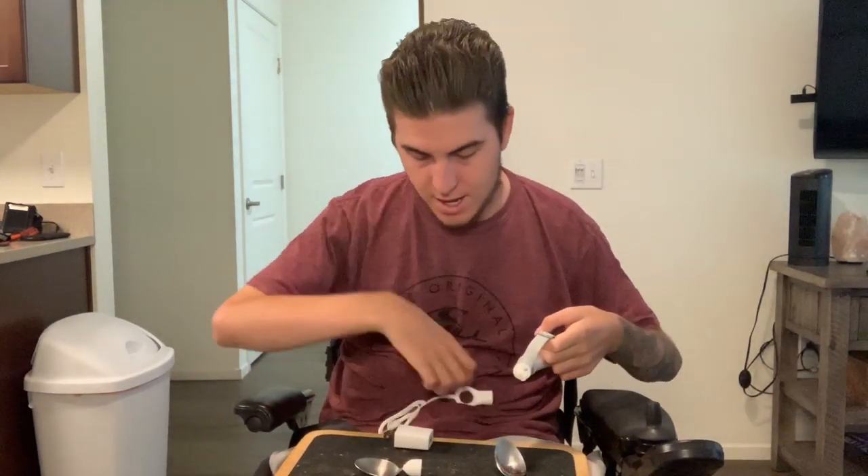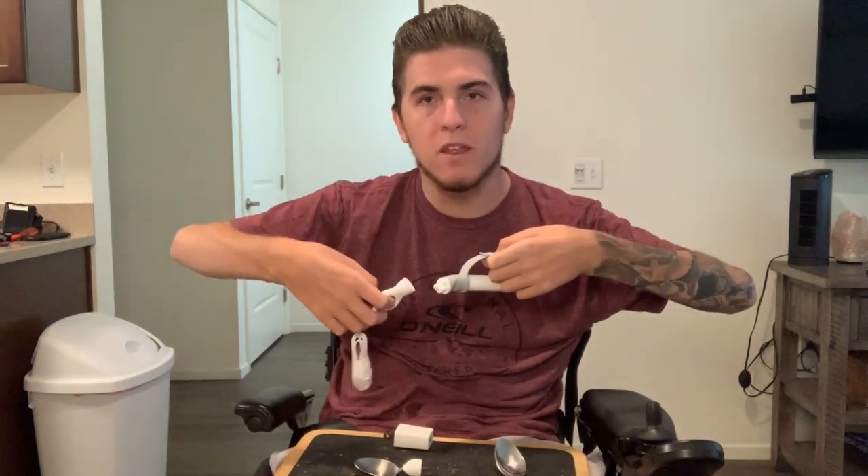So this thing you charge, and it looks like the battery just died. So I'm going to have to charge it and I'll be right back. Since the battery just died on me, I figured I'd show you guys how the charger works. I basically pull the spoon off the head of the device, and this is the charging cable — you basically just put it on the spoon, and it magnetizes super easily and is very accessible. Then you plug the USB into the part that goes into the wall. So I'm going to do that right now and charge it for a little bit.